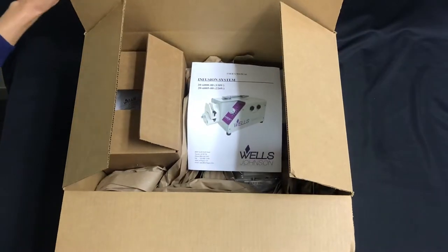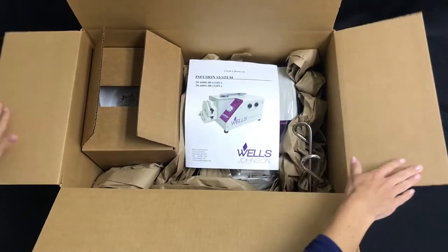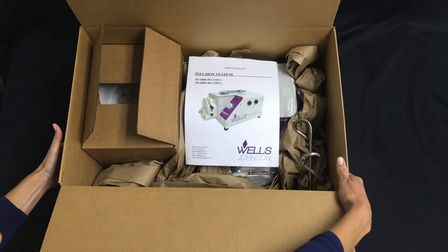Carefully unpack your new infusion pump and verify that the following components are included and in good working condition.